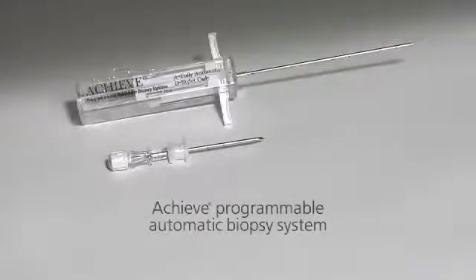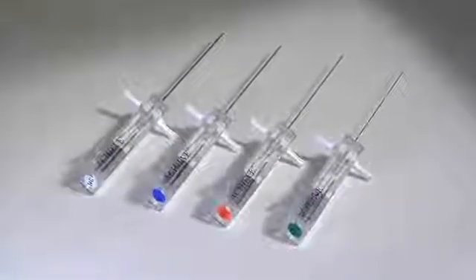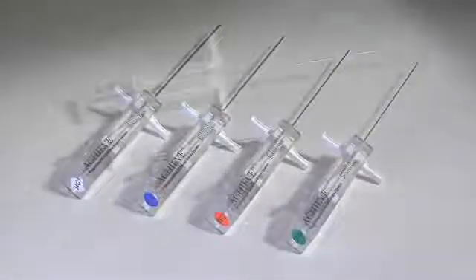The Achieve programmable automatic biopsy system is the one solution for your soft tissue biopsy needs. It provides precise control and quality sampling capability when working with calcified or fibrous lesions found in soft tissue.